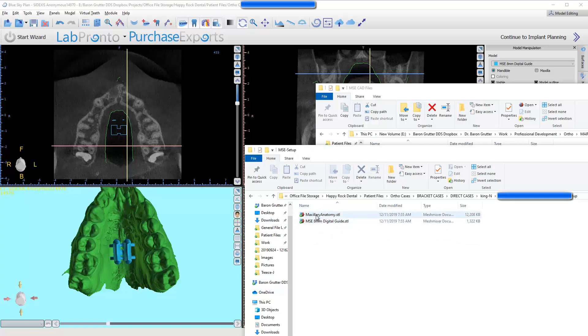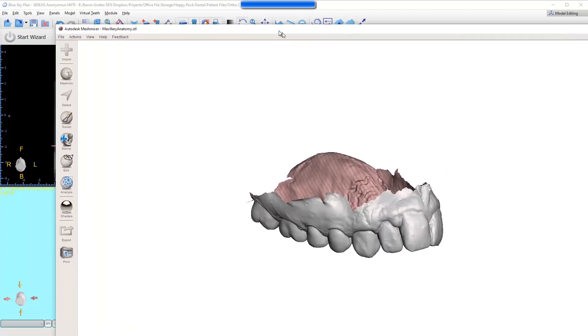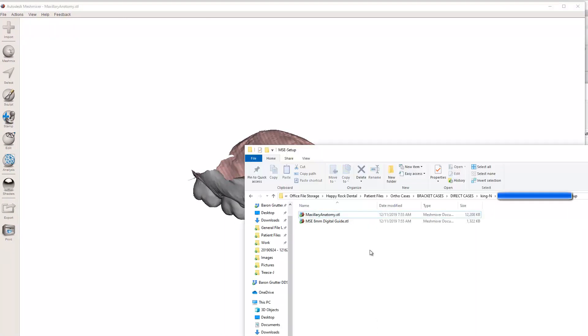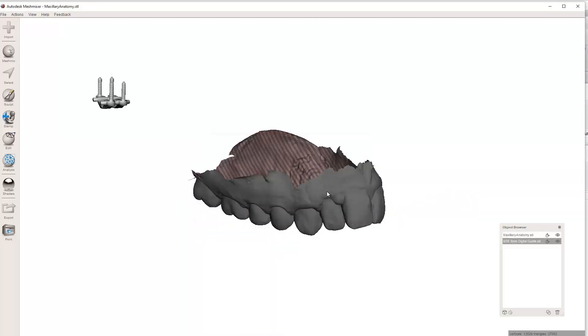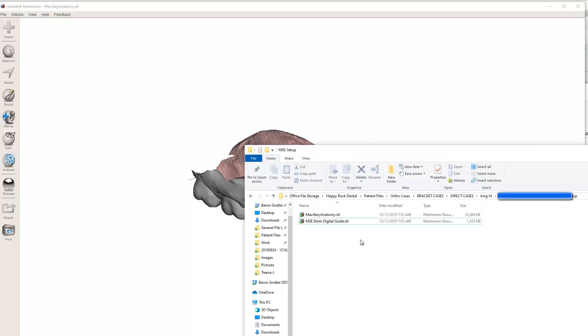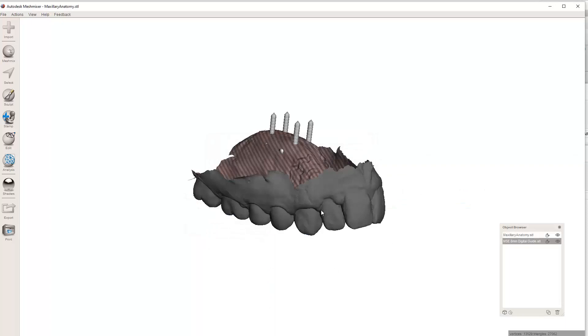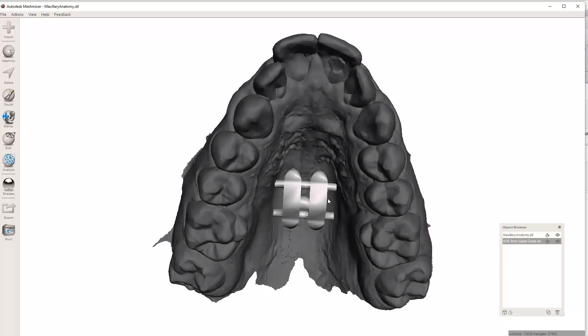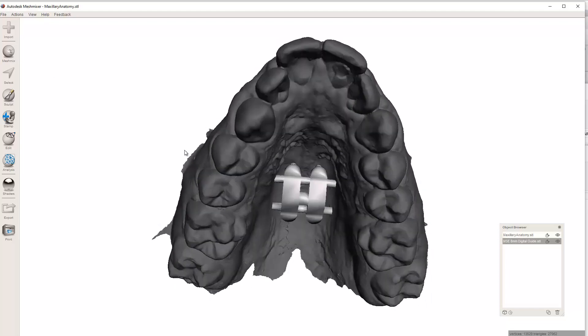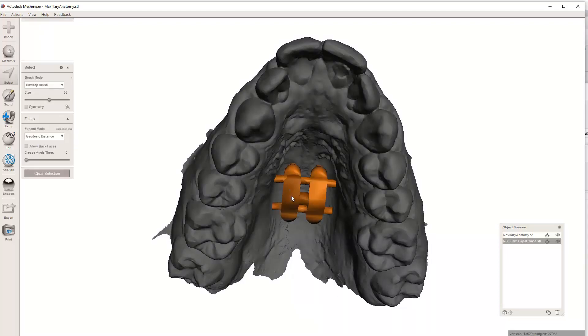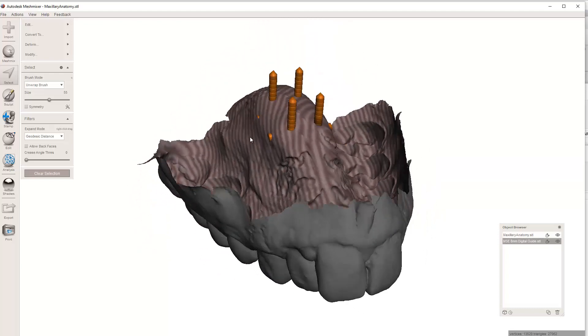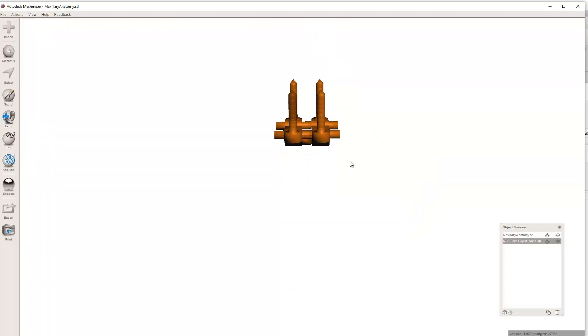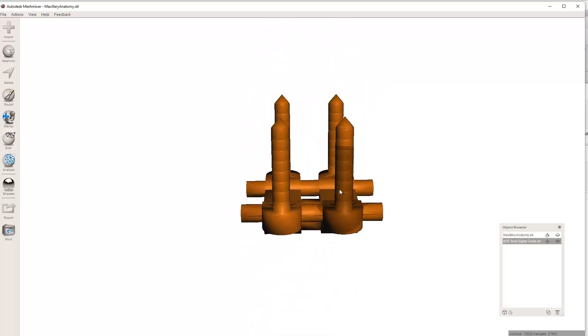What I'm going to do is I'm going to open this up in Mesh Mixer, which is a free software. The one I was using is BlueSkyPlan, BlueSkyPlan.com, or MeshMixer.com. Now, this is a different type of software here. It's another CAD software. I'm going to drag and drop this back in here. Append. That means just kind of add it to it. It asked me if I wanted it to move, and of course I don't. I hit yes at first by accident. At this point, I haven't tried this, but I'm betting that if I hit the select button up here and hover over top of it, it looks like maybe it was created as a solid object. That's fine. I can still work with this.